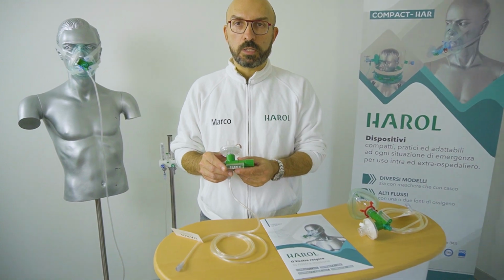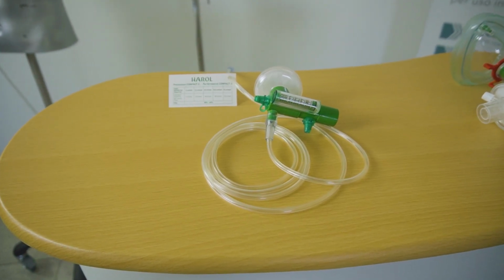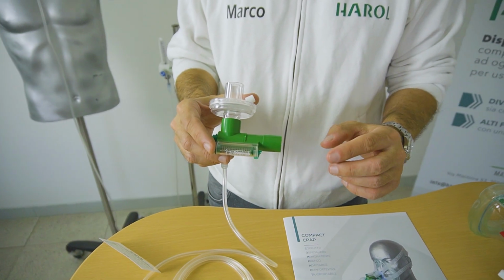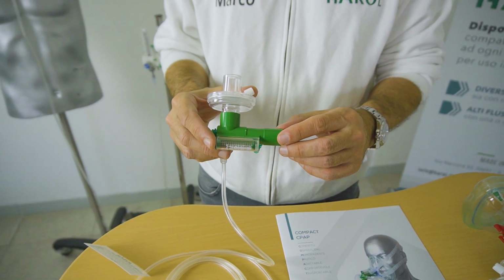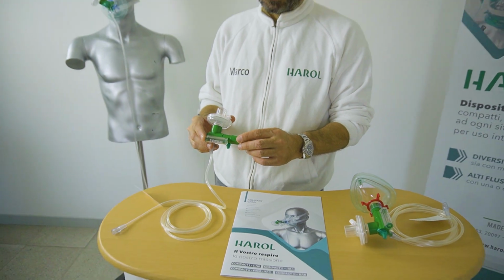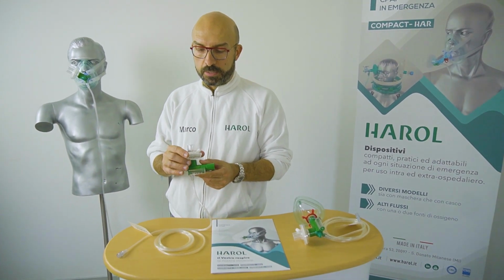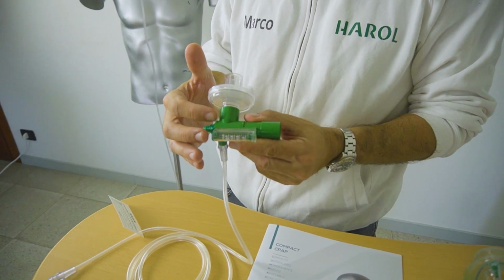It's composed by a mask and a Venturimeter. There isn't a physical PEEP valve, as the system creates a virtual valve. Based on the flow, the patient will experience during exhalation a resistance between 3 and 15 cm of H2O. It's an optimal product to be used during transport and in emergency departments as first approach with CPAP, as it requires only a normal source of O2 at 15 liters per minute. The Compact2 device is equipped with an integrated bidirectional antibacterial filter and an integrated pressure gauge for convenient monitoring of the work pressure trend.